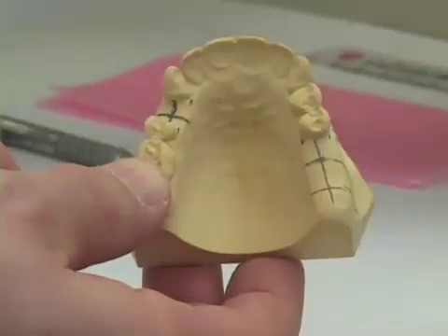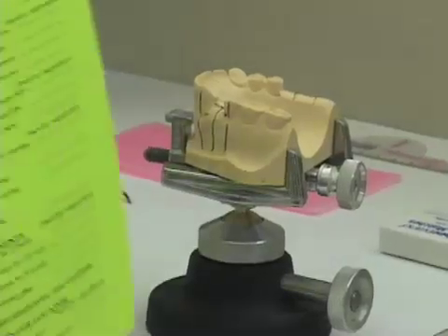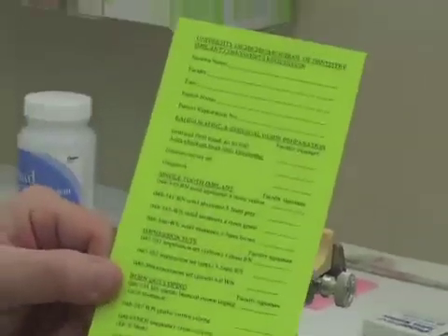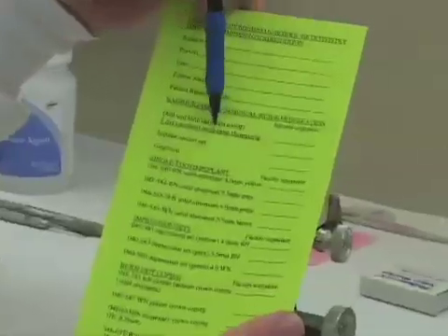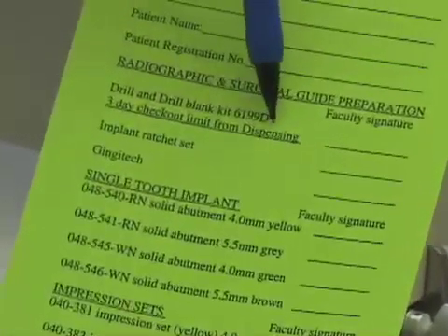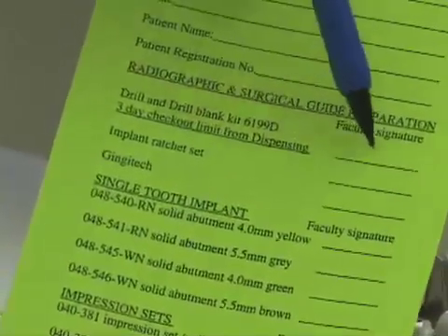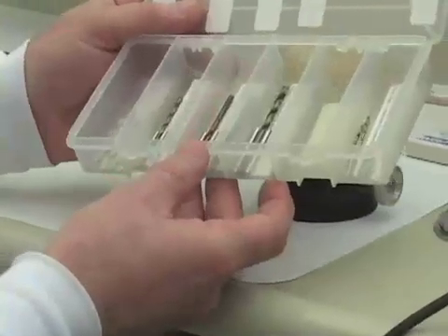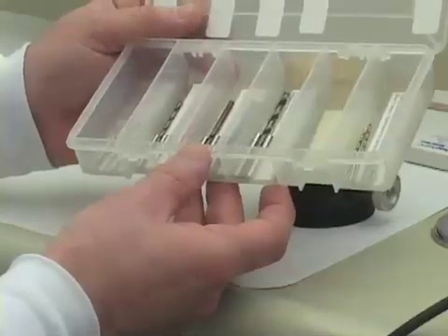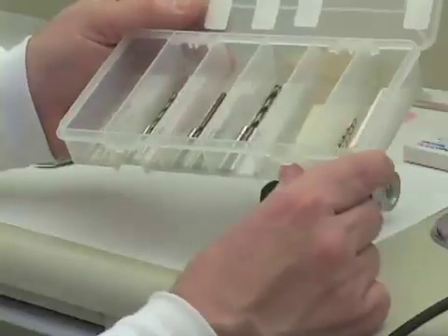Now that we have the locations for the implants, the next thing we want to determine is the orientation of the implant. To determine the orientation, I bring in the surveyor table. To get the drill blank kit, there is a green requisition form at the dispensing desk with an area for the drill and drill blank kit. Get your faculty's initials in this area and you can check out the drill and drill blank kit, which comes in a plastic box. The 2.0 millimeter drill blanks on the extreme right-hand side are the size we use for our radiographic guides.